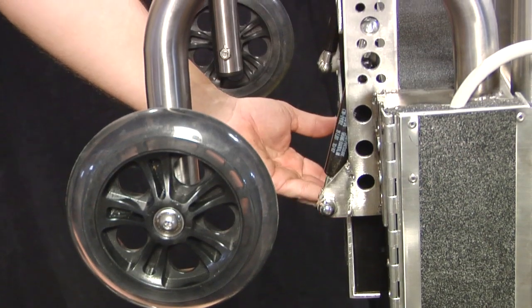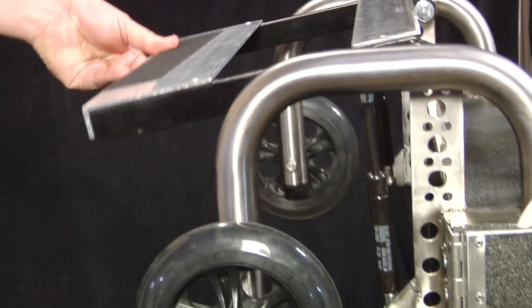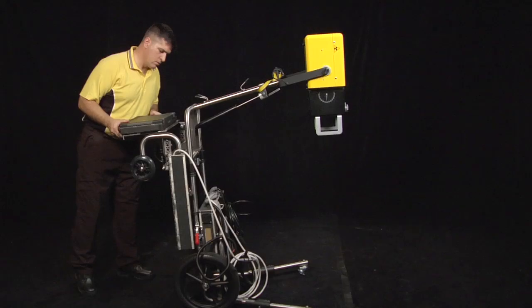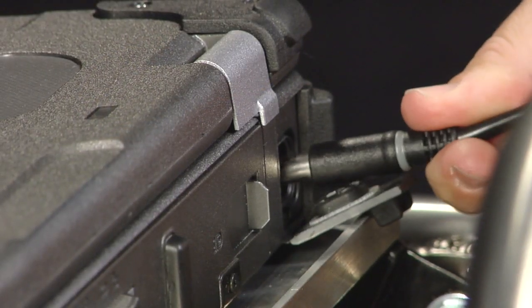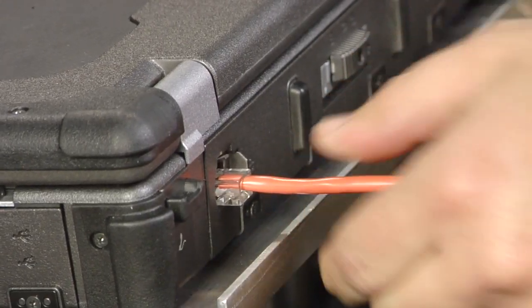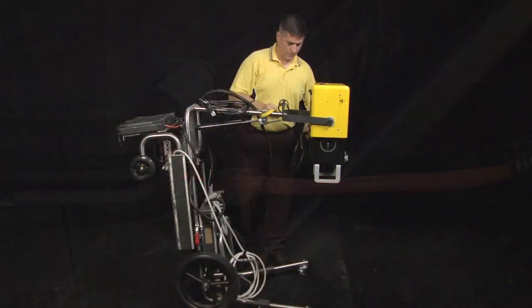Secure the Dell XFR laptop to the laptop tray on the upper IP storage tower. Connect computer connection bundle into the computer power outlet and connect the RJ45 connector into the ethernet port on laptop.